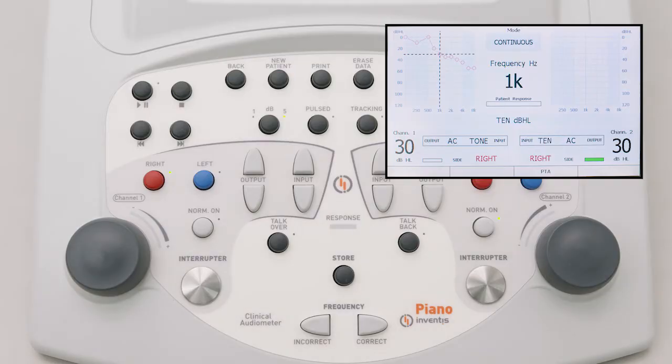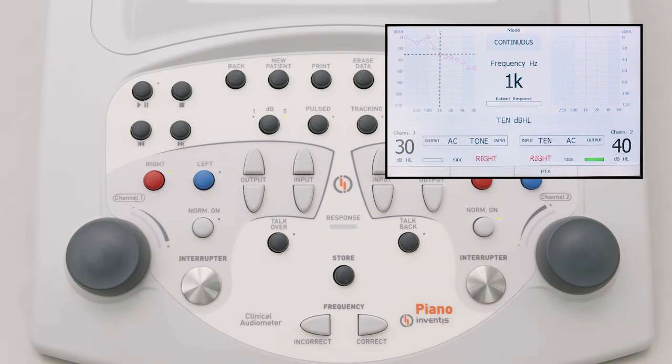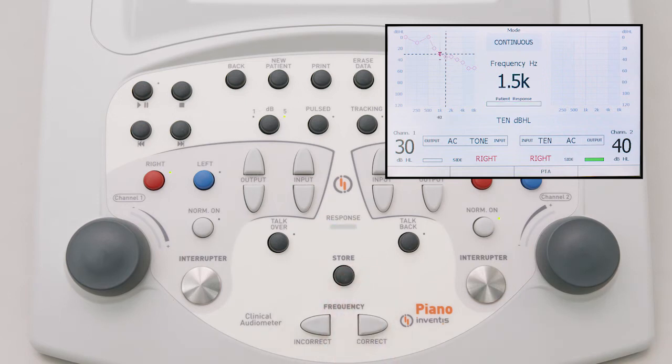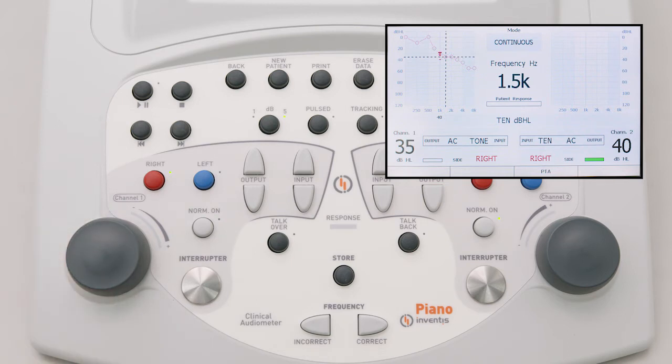The TEN test can be used to detect a dead region in the cochlea. The test involves measuring the threshold for detecting a pure tone presented within a background noise called threshold equalizing noise. It is necessary to assess the patient's pure tone threshold beforehand, which is then displayed in the background of the graph.